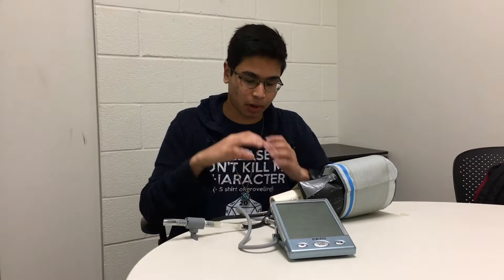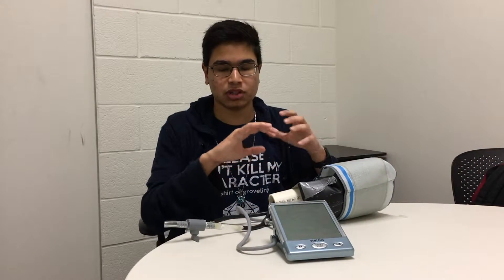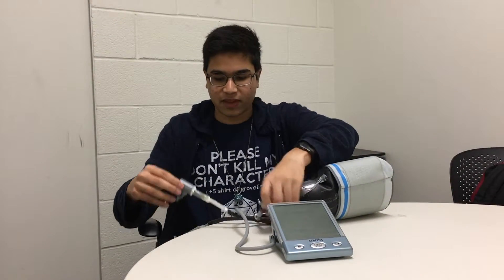The parts of this prototype are a PVC backbone which acts as a frame for everything to be built around. We also have a black medical bag which acts as the arm and simulates the blood flow. We have a valve and clamp which prevents water from flowing out, and we can undo the valve and clamp to refill the bag in case of leaks or evaporation.